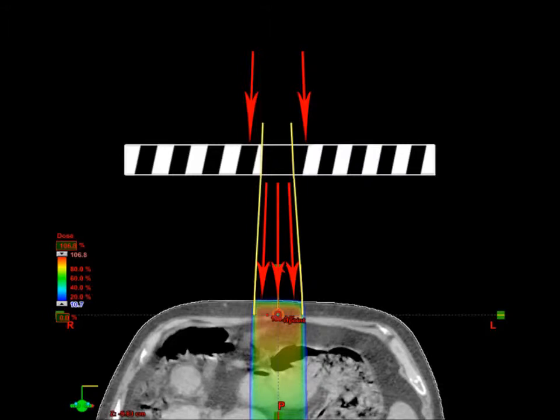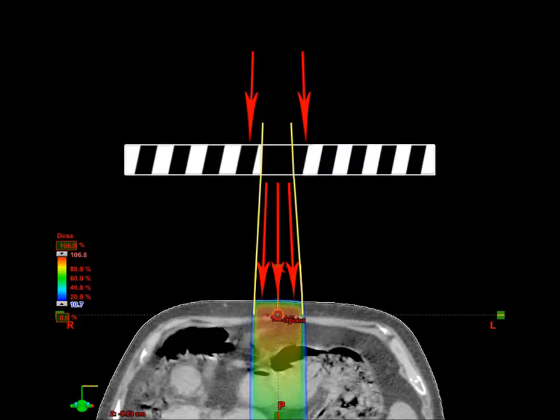To make the same amount of dose at our isocenter, we must put more through the aperture. Because some of the beam's scatter is being blocked, more is put through to compensate and get the same result. This is why you have more monitor units for a smaller field size and fewer monitor units for a larger field size.